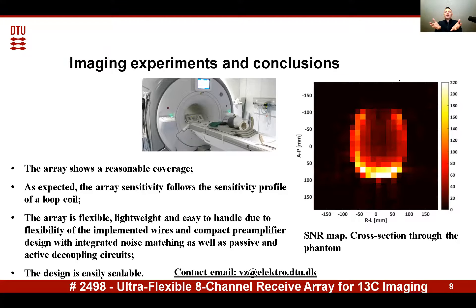While the phantom head perimeter is approximately 60 centimeters, meaning that the phantom could not be covered entirely. This is the reason for the darker area on top of the image, where there is no active element actually present.